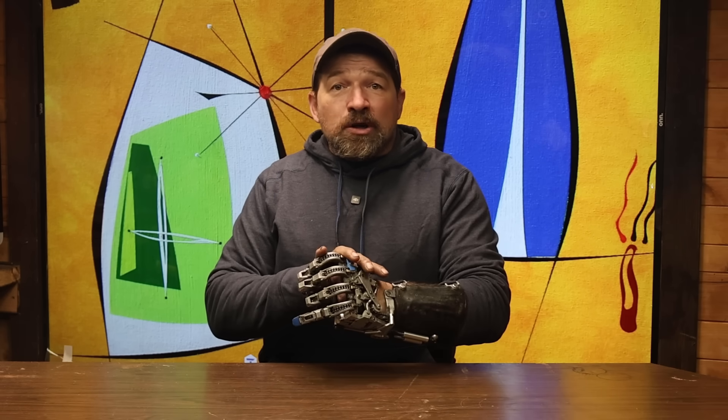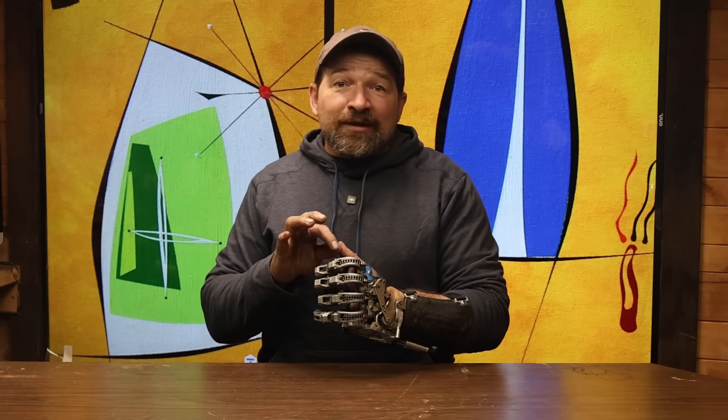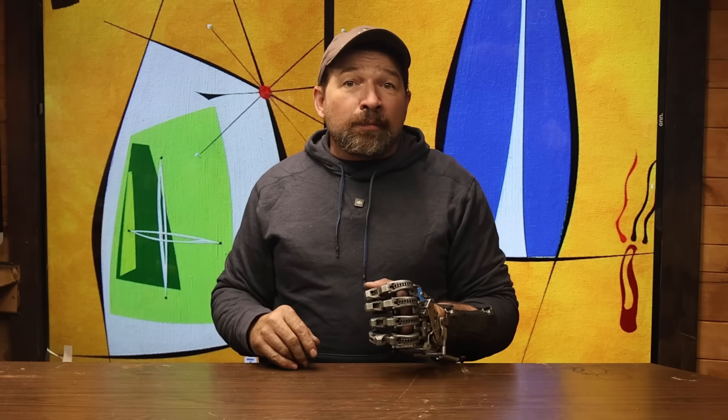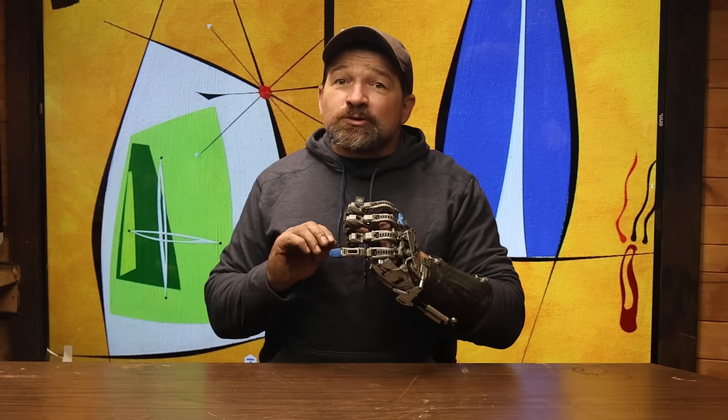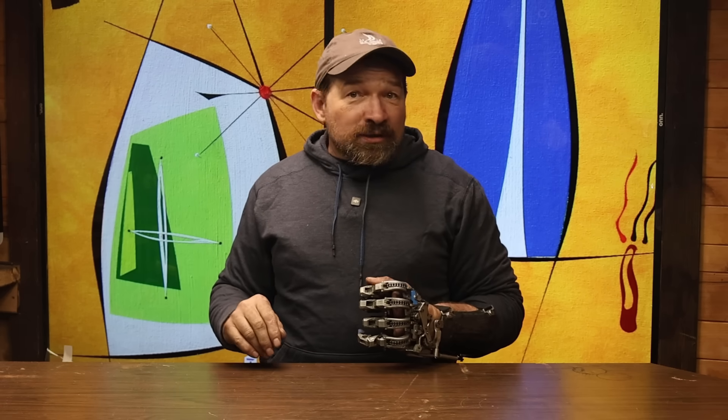On average, I'm hearing that a pair of sockets will run between five and six grand. Or for somewhere around a thousand dollars worth of materials and some time, you could learn how to cast your residual limb and lay up your own sockets. The best clinician will never know how the socket feels on your residual limb. And if you know how to fine tune the fit, you'll be able to spend whatever time it takes to get the perfect fit. When your residual limb changes shape or size, you can take a weekend and make a new set of sockets. If you do it all yourself, you're not going to be subject to medical markup or someone else's schedule — that is way better than being without your device because it needs to be sent off to some lab in Ohio because they're the only ones that can work on your device.